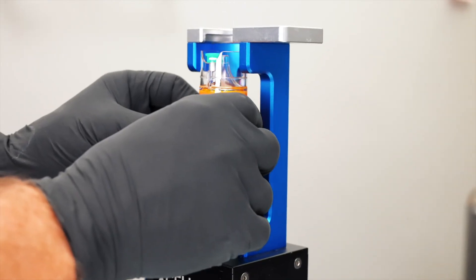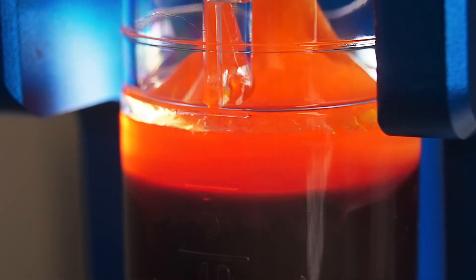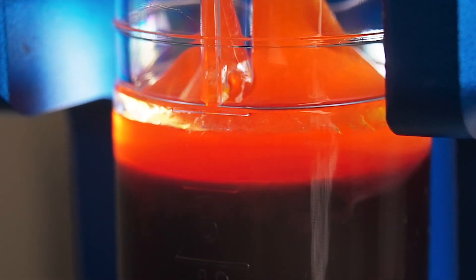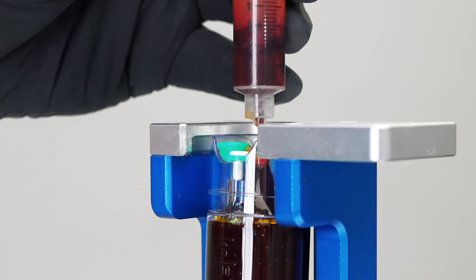Our full line of products include platelet-rich fibrin, A2M filters, wound patch, and cell counting instruments for private practices.